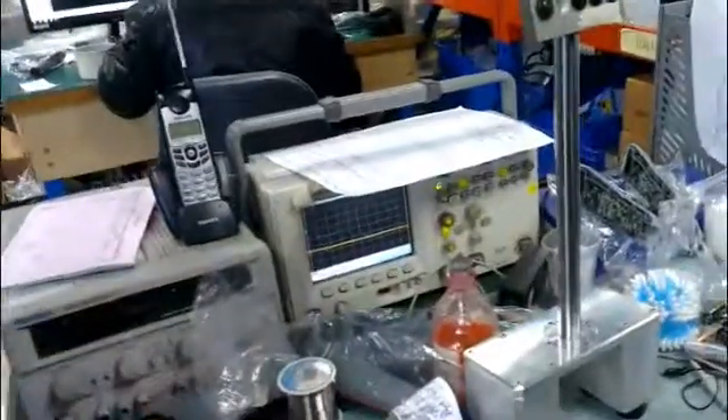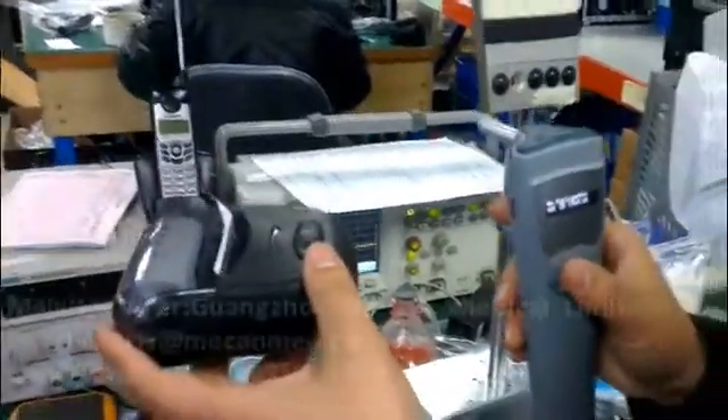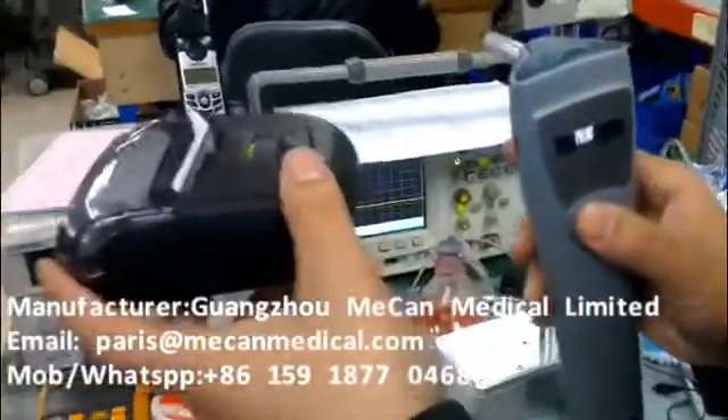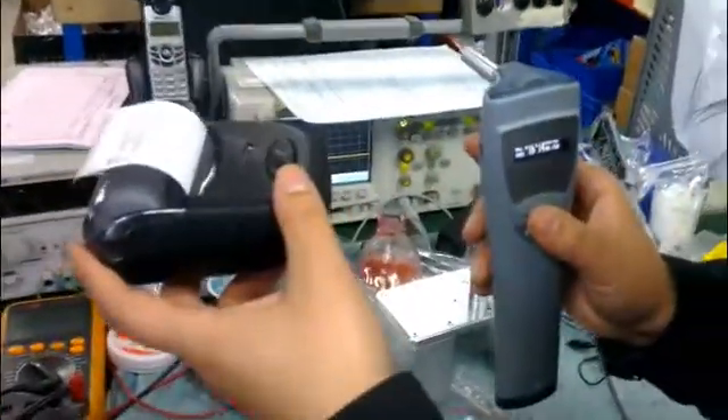Press enter. Now we are preparing for printing the data. It's no problem — long press enter and you can print it automatically.